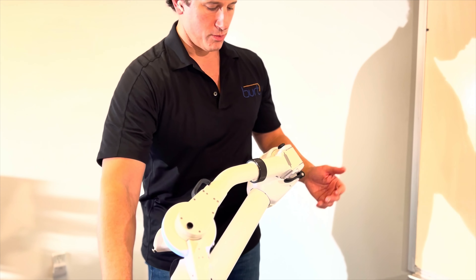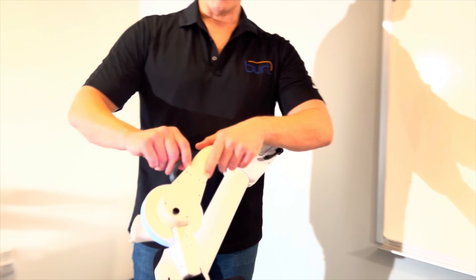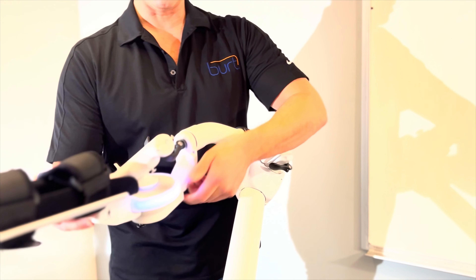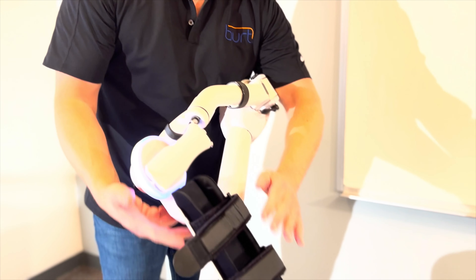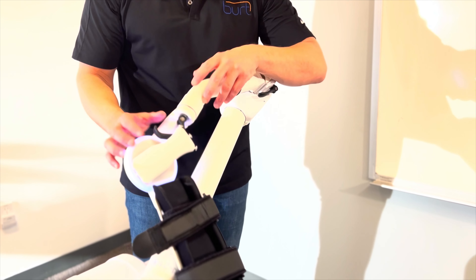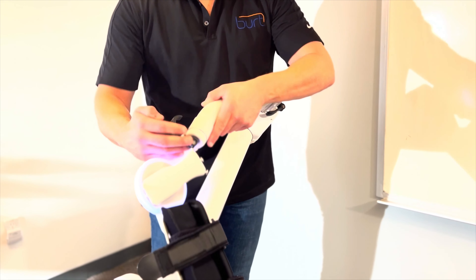We've done the shoulder, we've done the elbow. Next is the wrist. We have another lever right here. If I pull this out and then rotate this around — I like to have the forearm piece just slightly hover above the arm — we lock it back up. It is now ready for the right-handed person. The one thing we're missing is this piece right here, which you just slide like so, which should kind of be like a ski jump: it goes down and then back up.